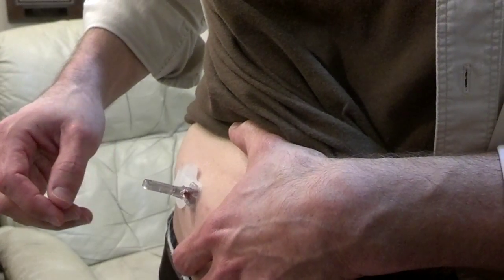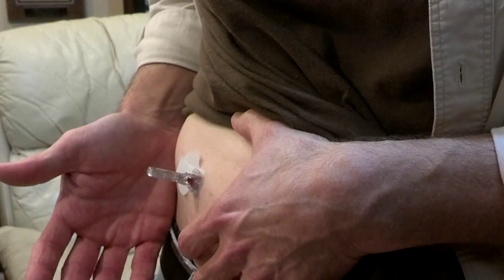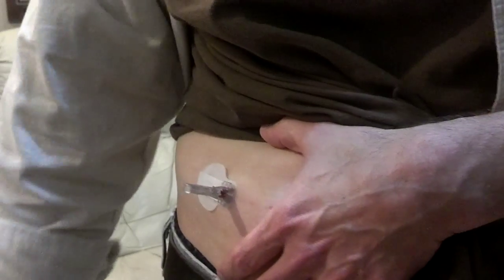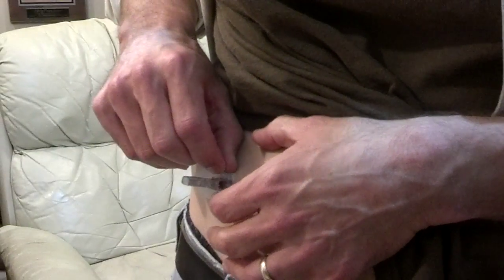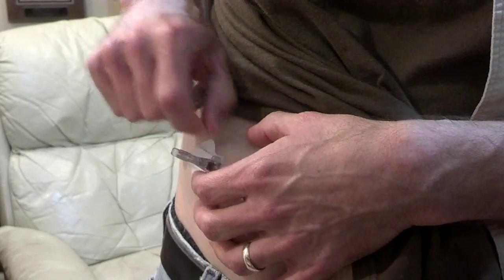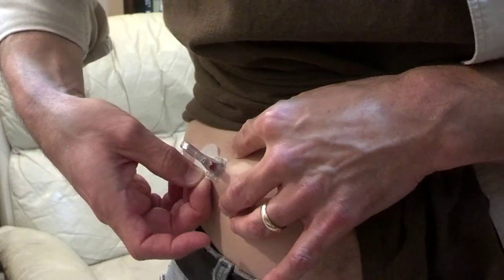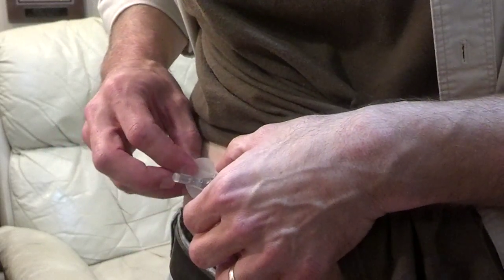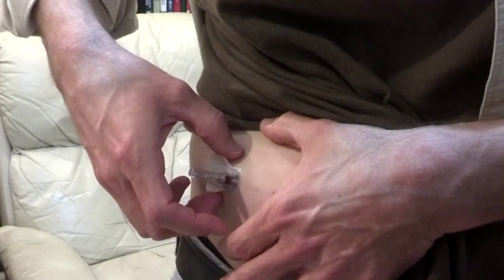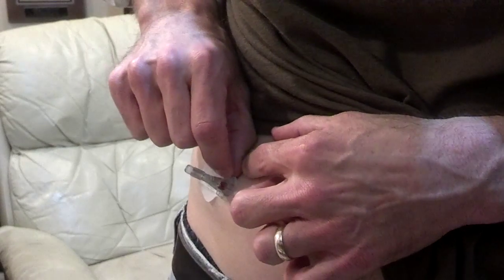This time I'm going to remove it just by ripping out the adhesive, and hopefully it won't hurt too badly. The positive side is I'll be able to send it back to MiniMed and they can see what caused the problem. If it was something I did wrong — I don't know how I possibly could have — I've done it right basically every other time. A well-trained monkey should be able to do this.